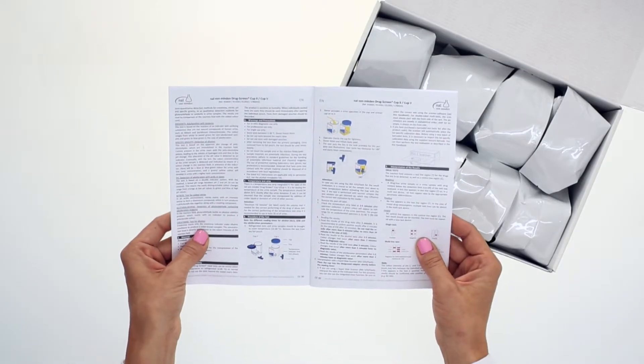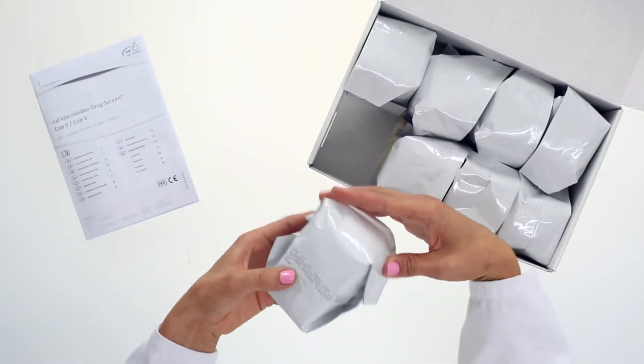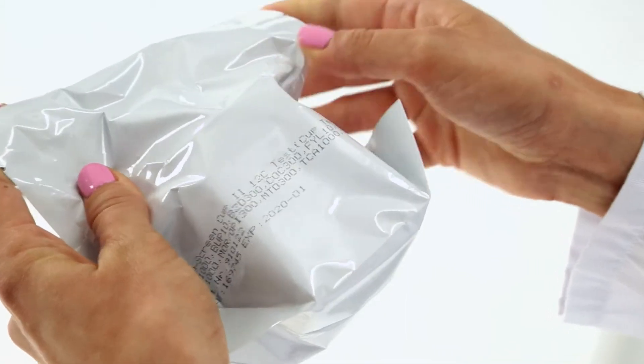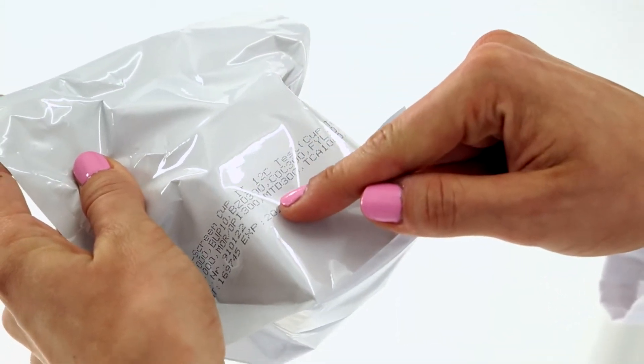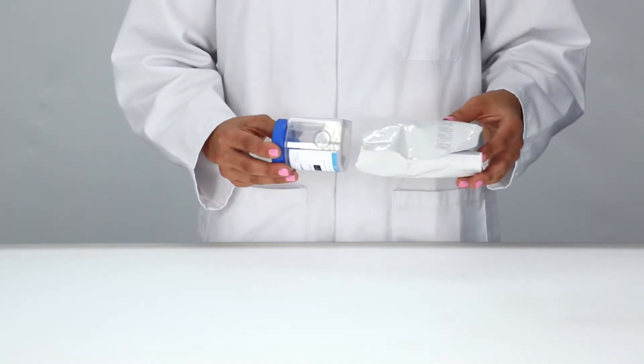Always start by reading through the instructions carefully. Do not use tests with damaged pouches or beyond the stated expiry date. Use the test immediately after removing it from its pouch.